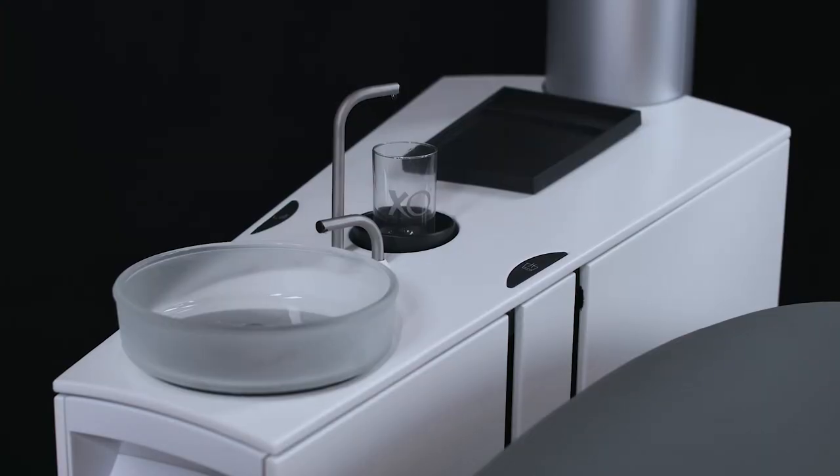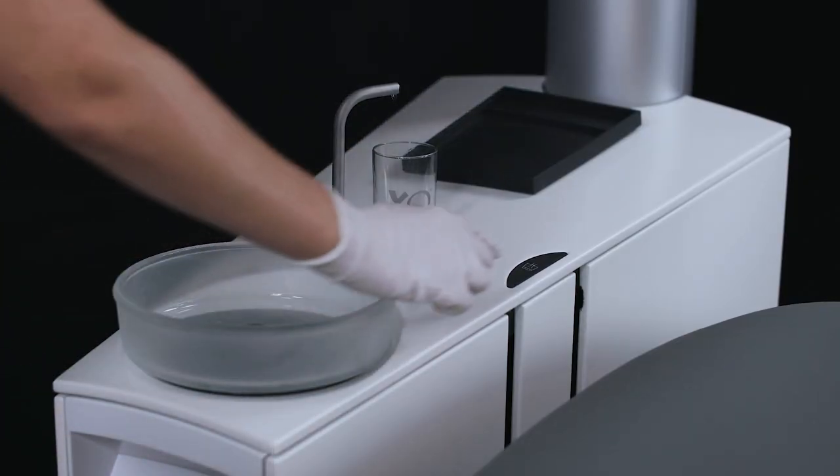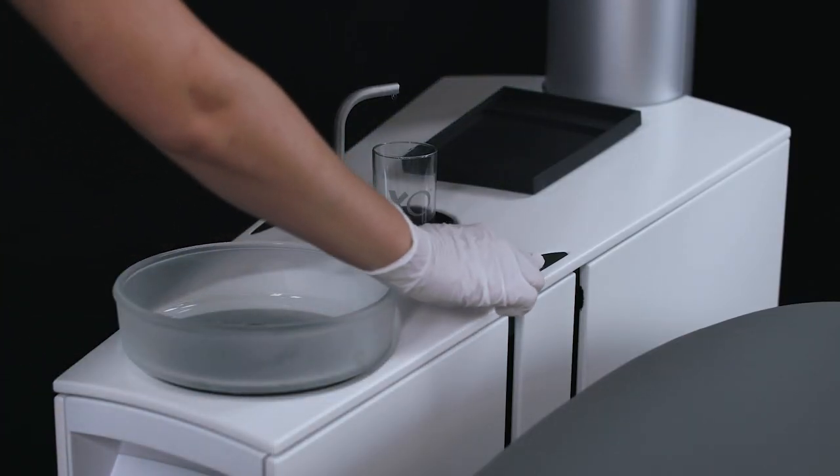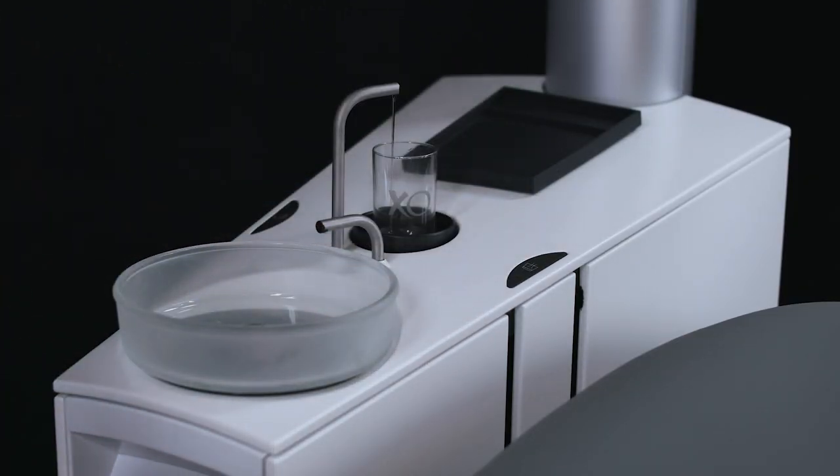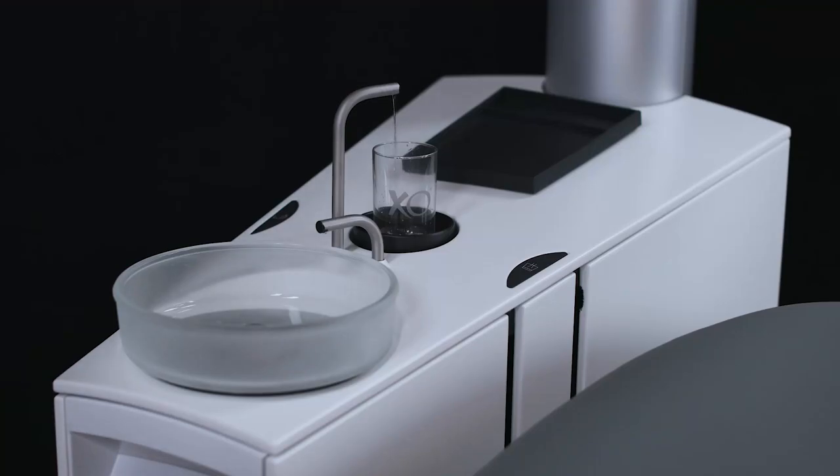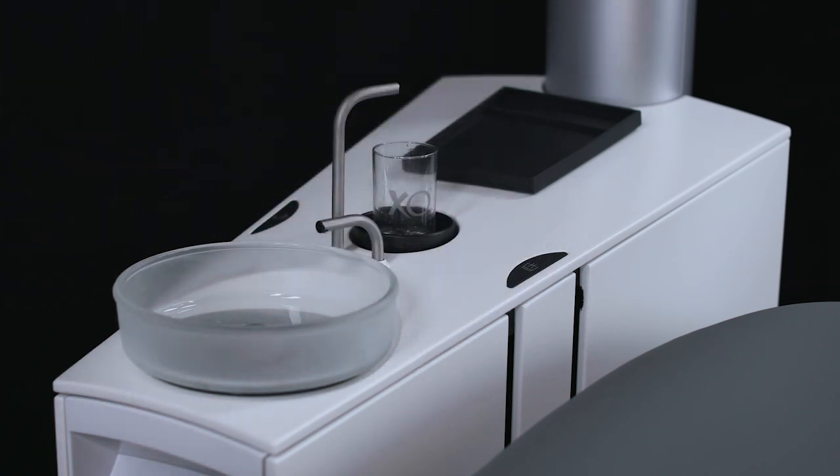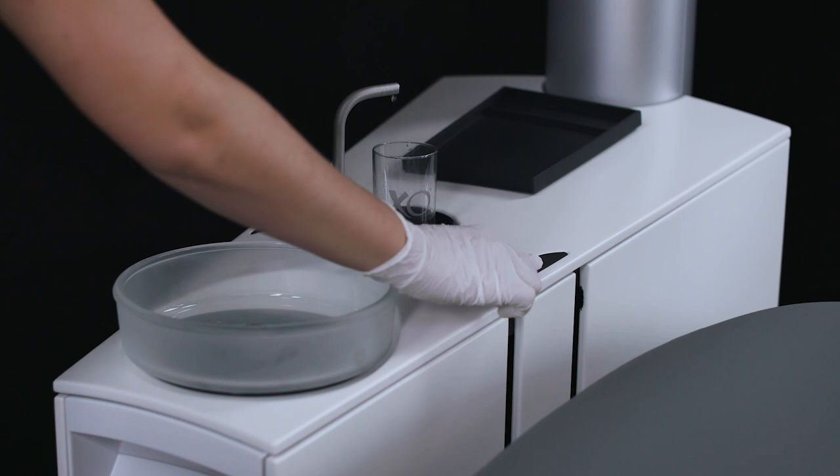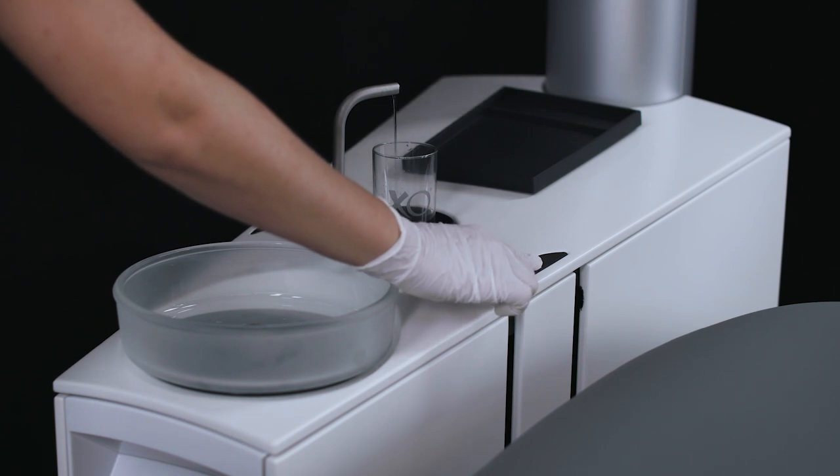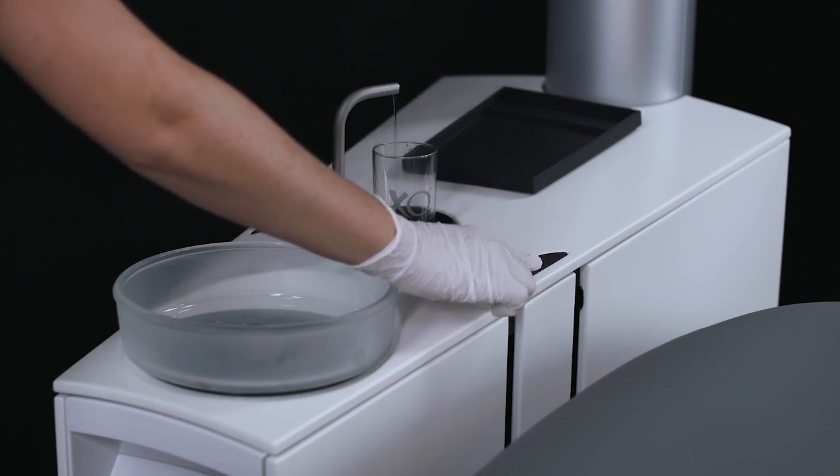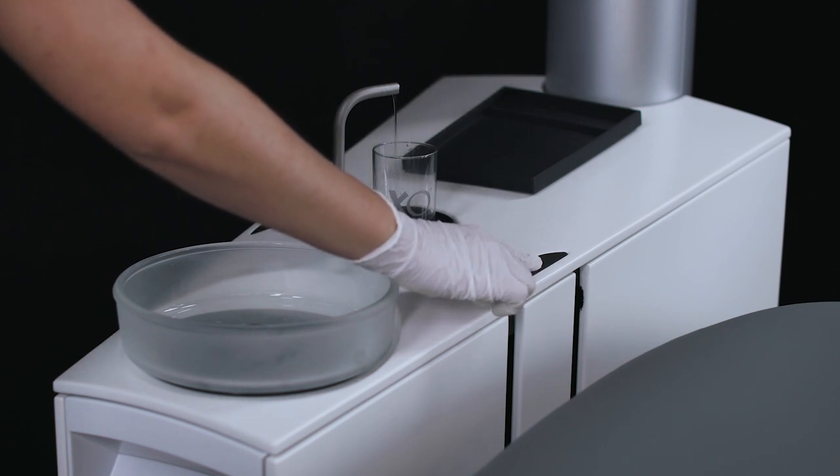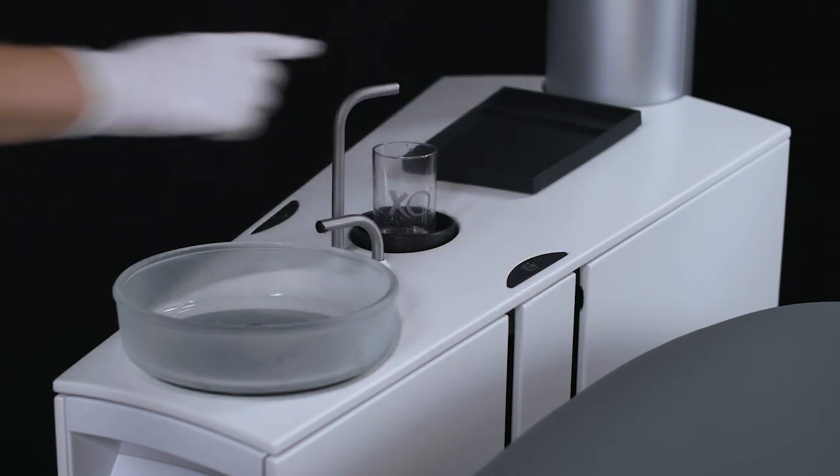Push the button on the right side of the top cover for less than one second and the glass will fill with the pre-configured amount of water. Push the same button again for less than one second to stop automatic filling. If the button is pressed for more than one second, water fills the cup only while the button is activated.